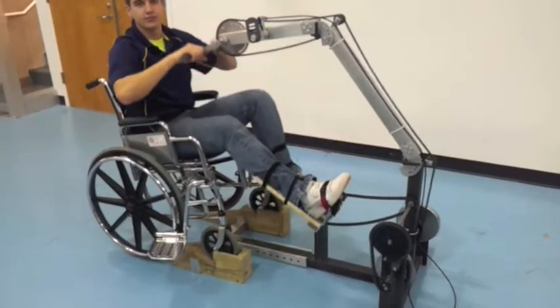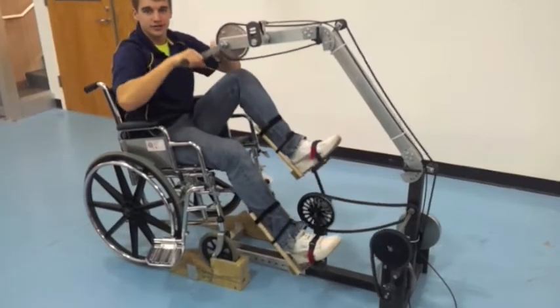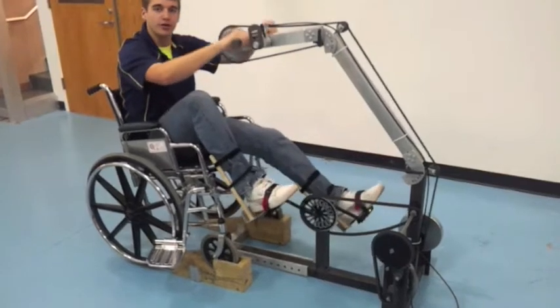As you can see, the legs move at a speed of about six times slower than the arms. If you are rehabilitating or paralyzed, you don't use your legs too often, so you want to provide a different workout that is more therapeutic.